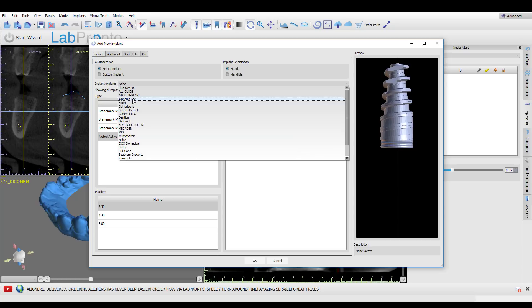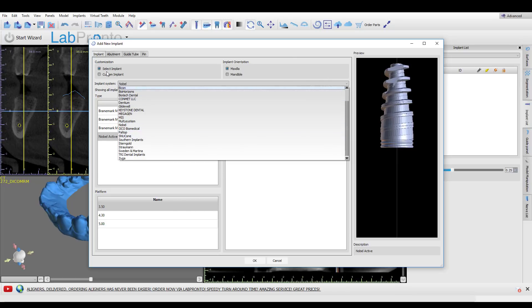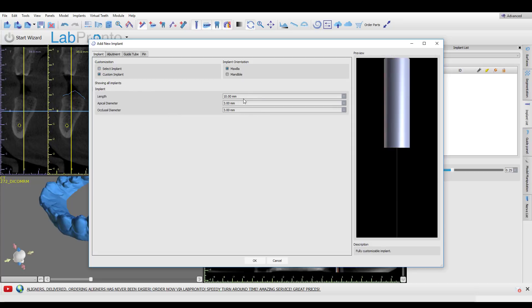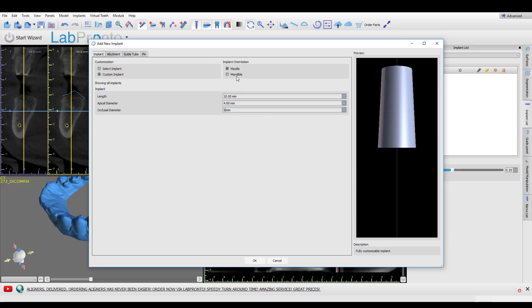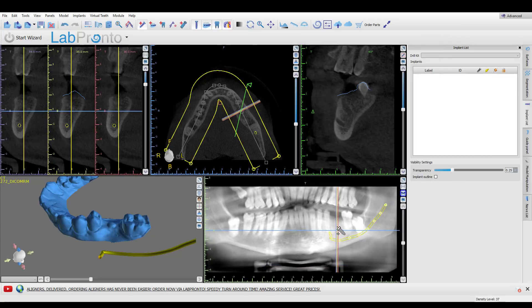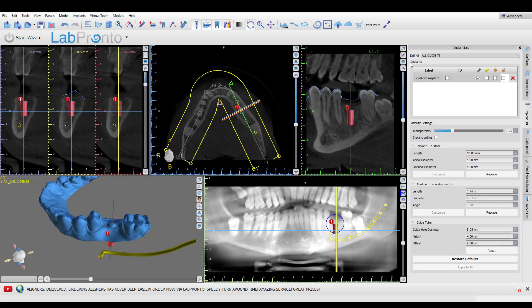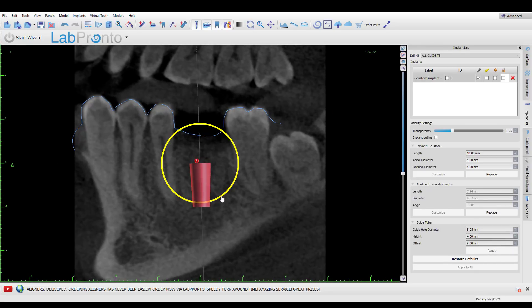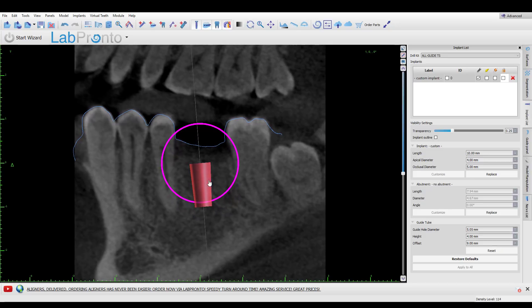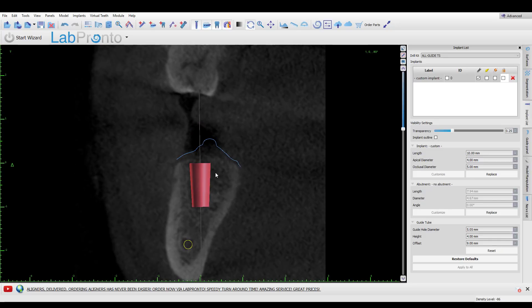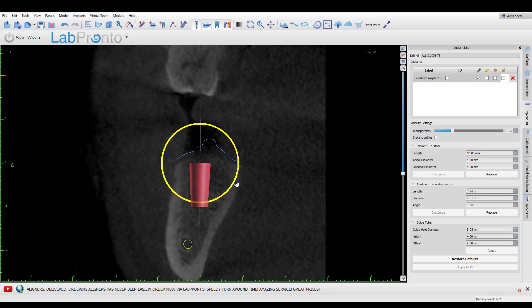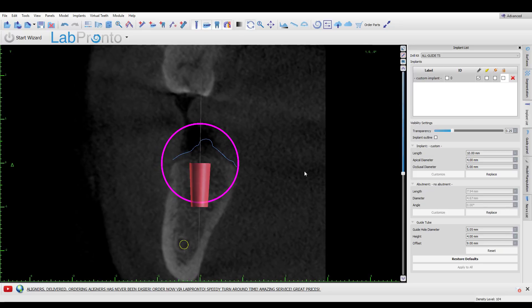But what do you do if you're using an implant that is simply not available in there? Well, we could select a custom implant. Let's make a 10 millimeter long implant — the apical diameter is 4 millimeters, the coronal diameter is 5 — and place this into our case. We can quickly position this, get it into the ideal prosthetic position, look at it from all angles, and make sure everything is lining up where it should be.